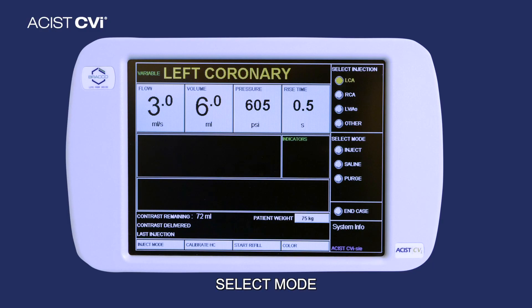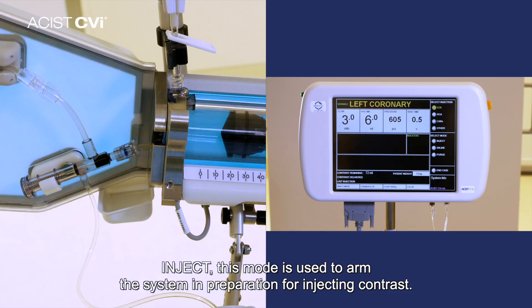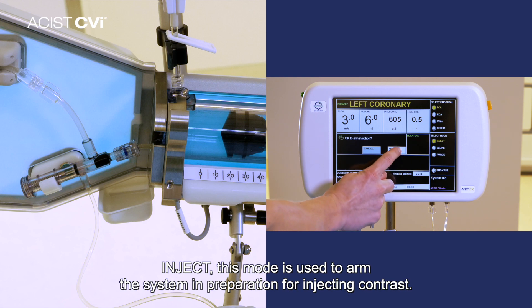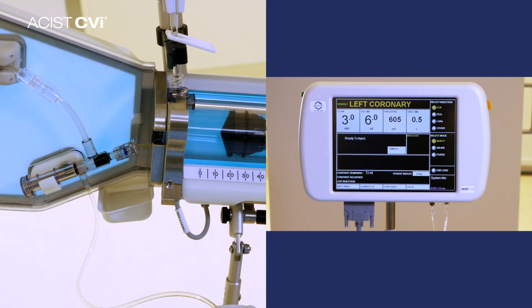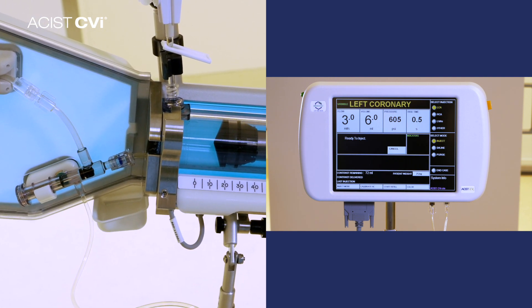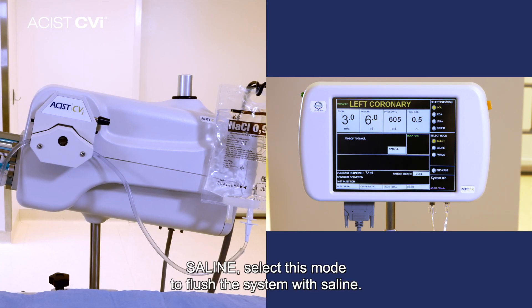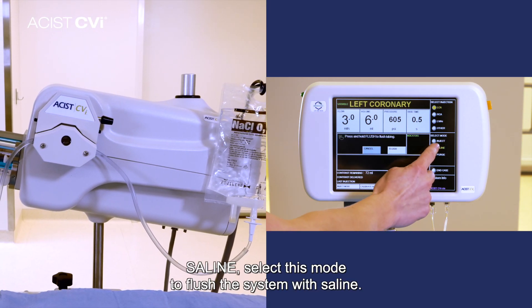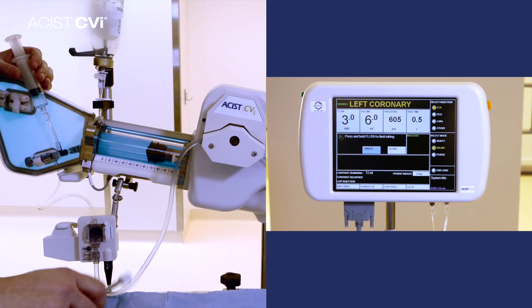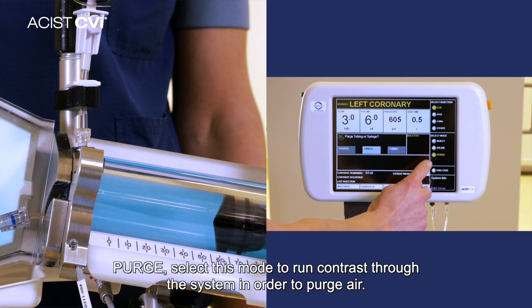Select mode: the select mode initiates the following three modes of operation. Inject: this mode is used to arm the system in preparation for injecting contrast. Saline: select this mode to flush the system with saline. Purge: select this mode to run contrast through the system in order to purge air.